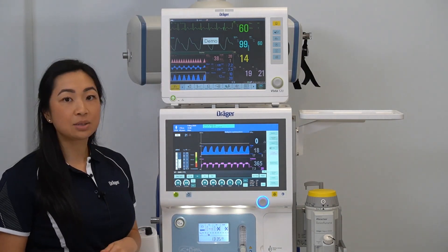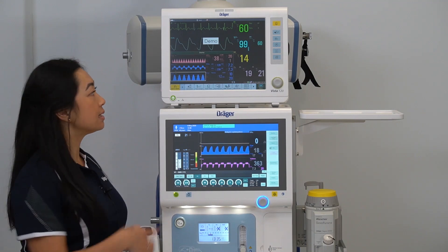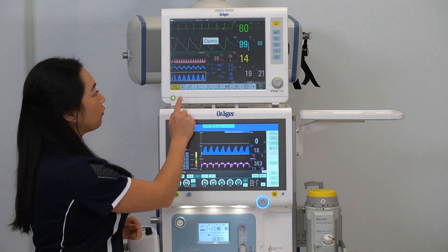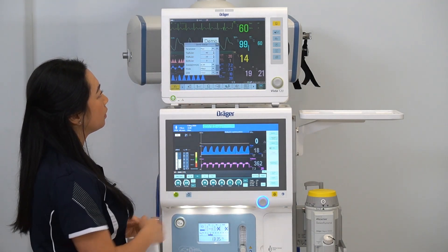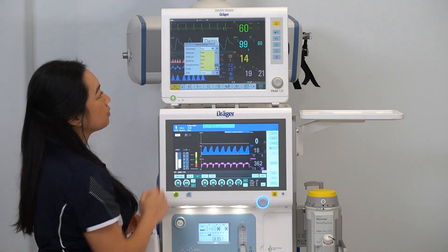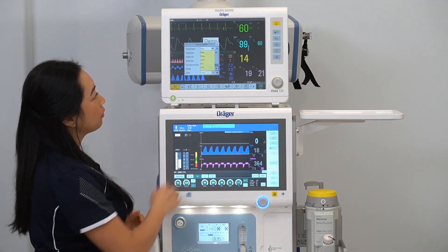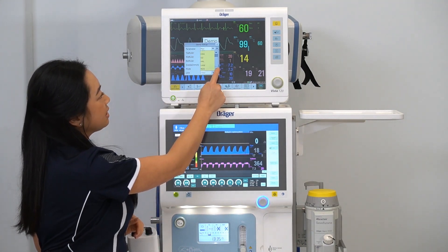To adjust what information is being displayed, select on a waveform, press the drop-down arrow, and choose from the list of options.